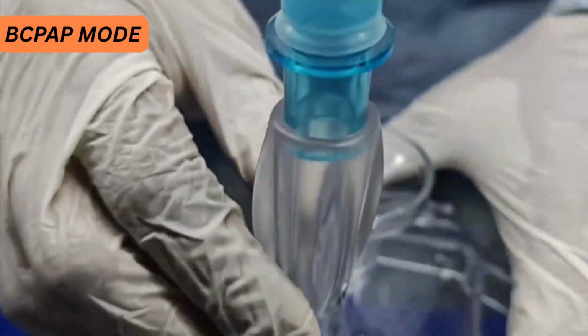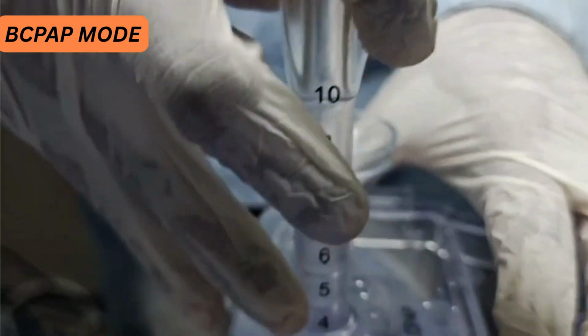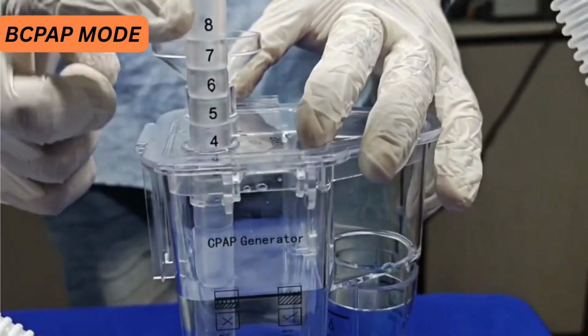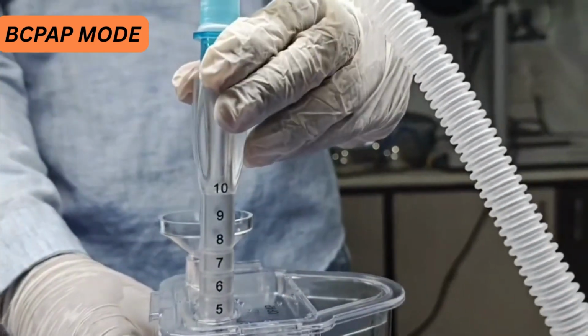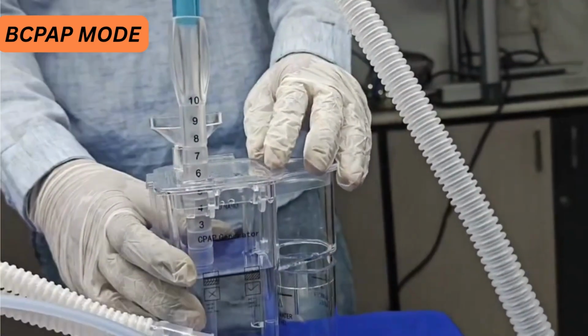Now you can see here we can set up the CPAP level from this bubble CPAP jar. It is indicated over here on the stick. Whatever the desired CPAP pressure we want to keep, we can make it here. This is 6 CPAP pressure that we have set.